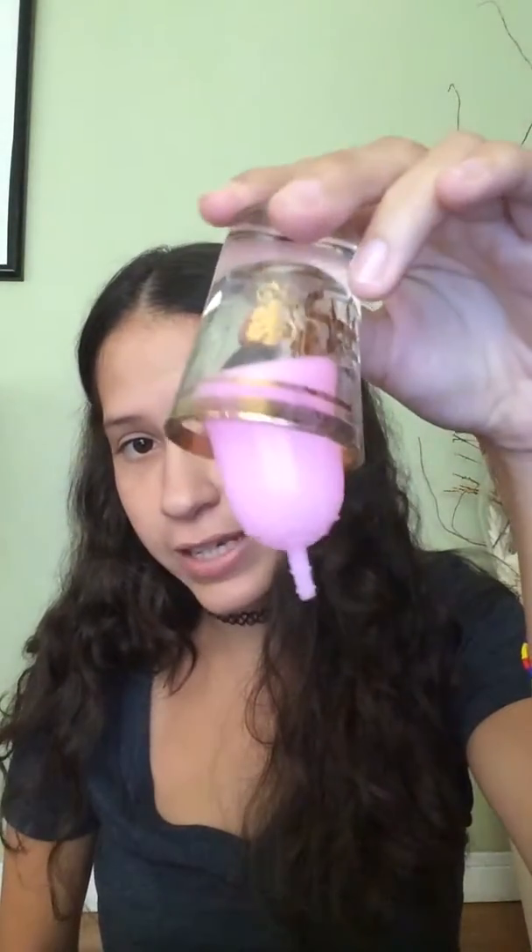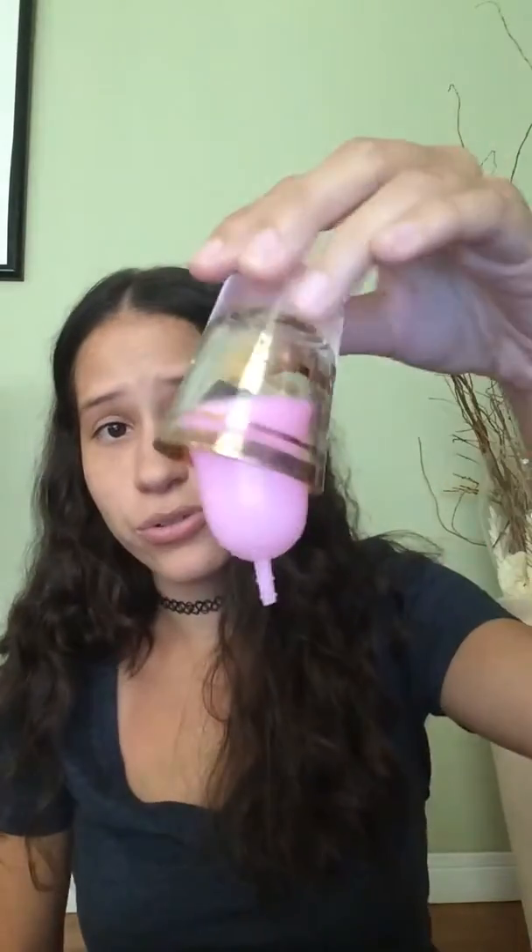The reason I have it curved like that is because when it's going into your vagina, it's going to be at an angle — it's not going to be perfectly straight. So I can tug on it — it came out — but you get the point.